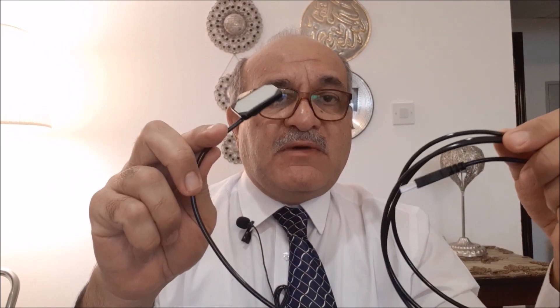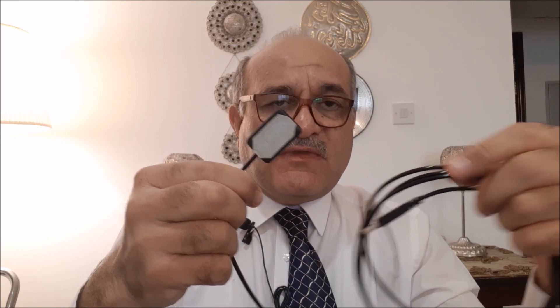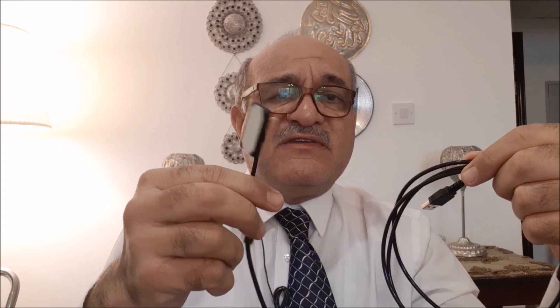The one we're going to discuss today is the most available one in the market, which is direct intraoral digital sensors. This is covered — I don't want to show the type of sensor — but basically they all work in the same manner.